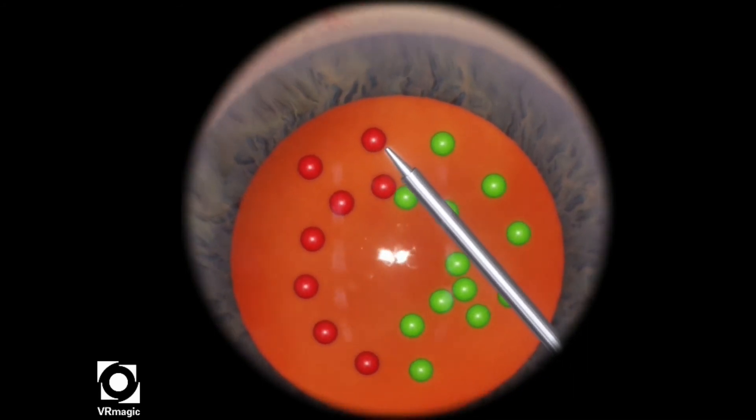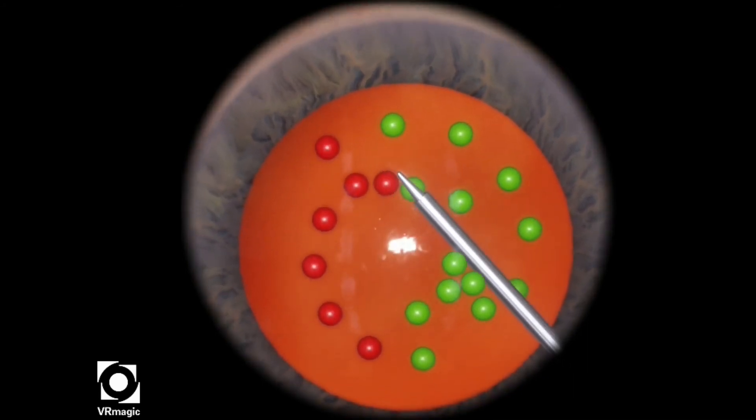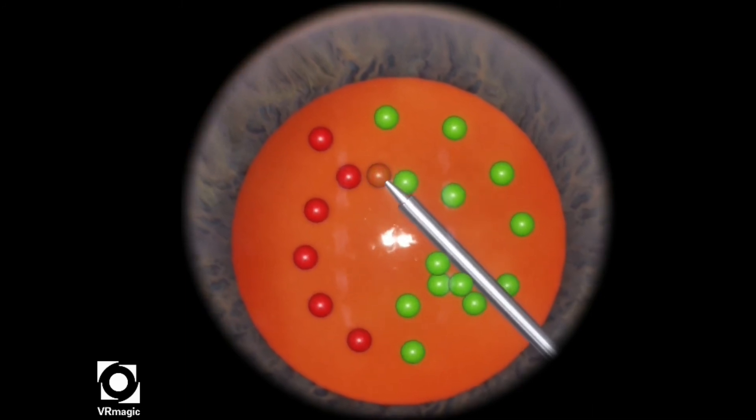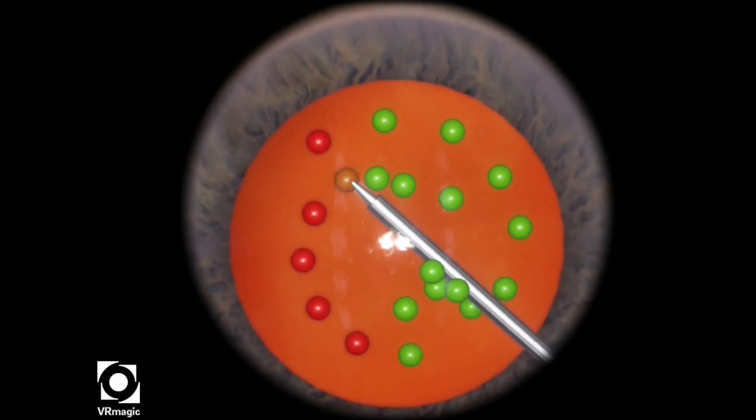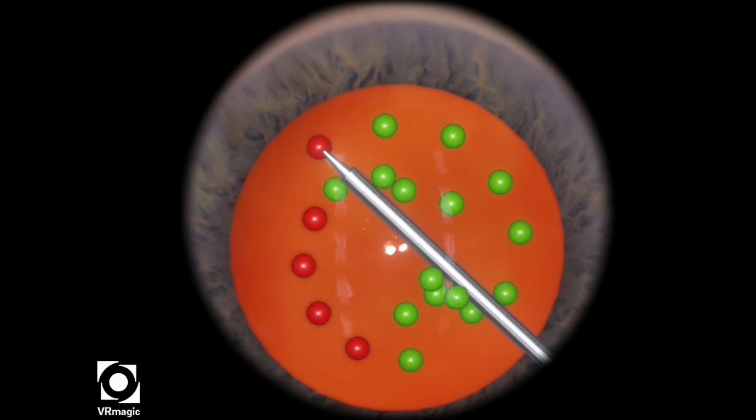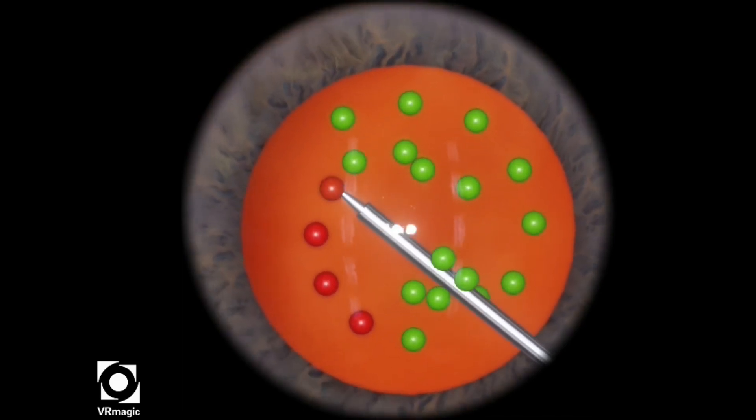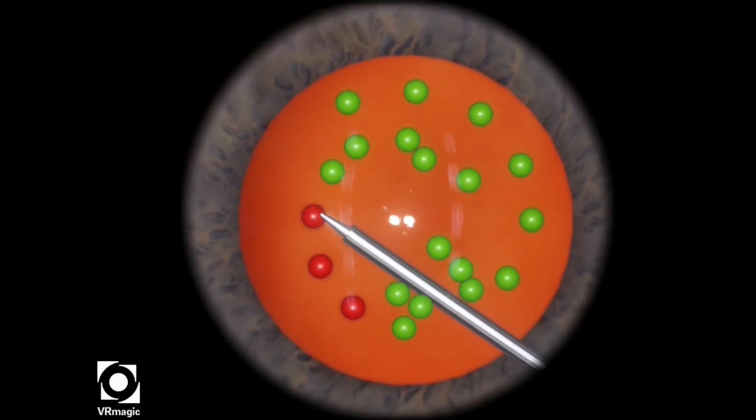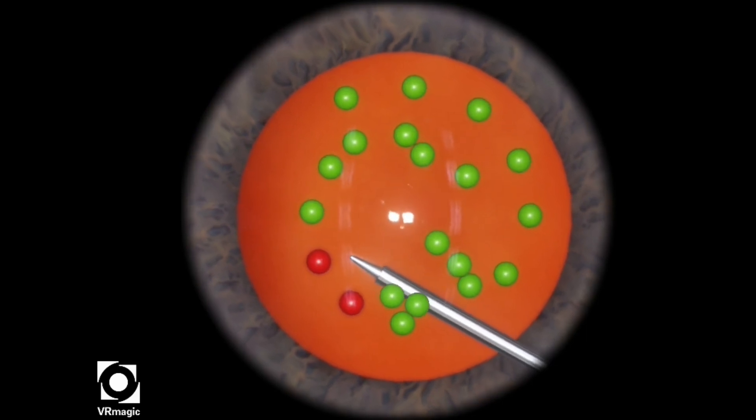As you can see, I'm being very careful, not afraid to take my time and shading each sphere so that it turns entirely green. And only then will I get the tip out of each sphere.